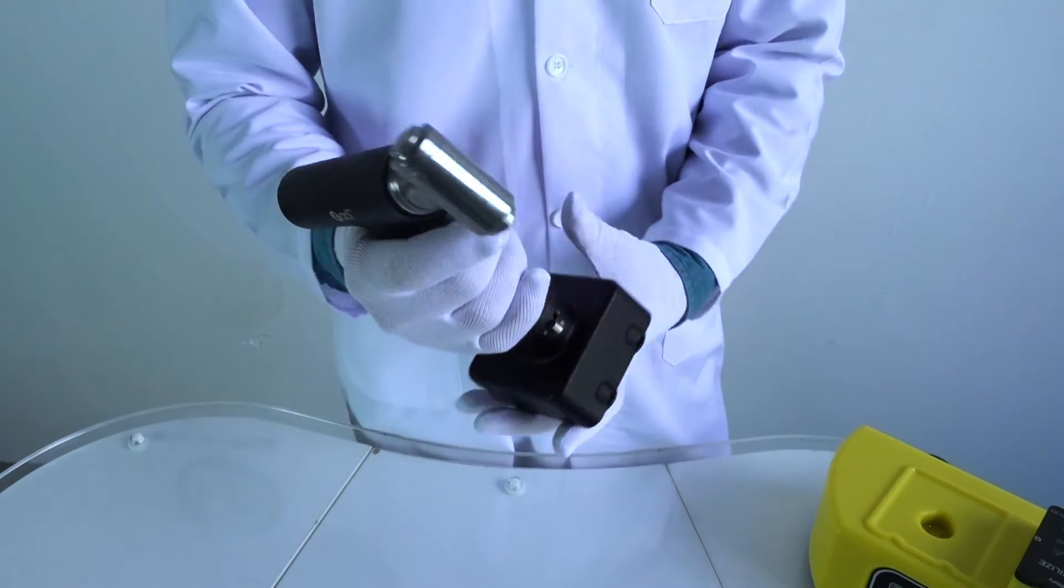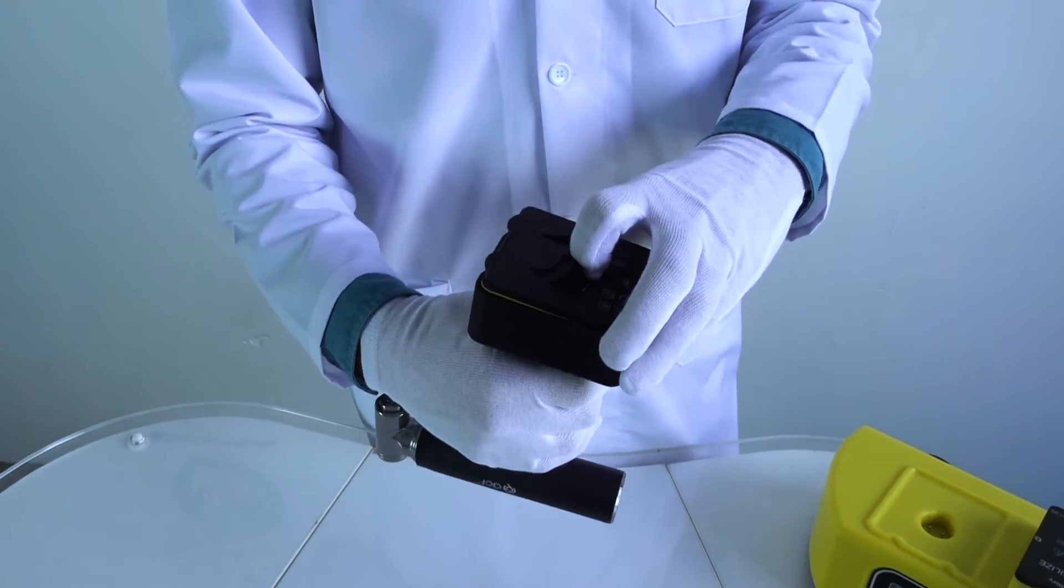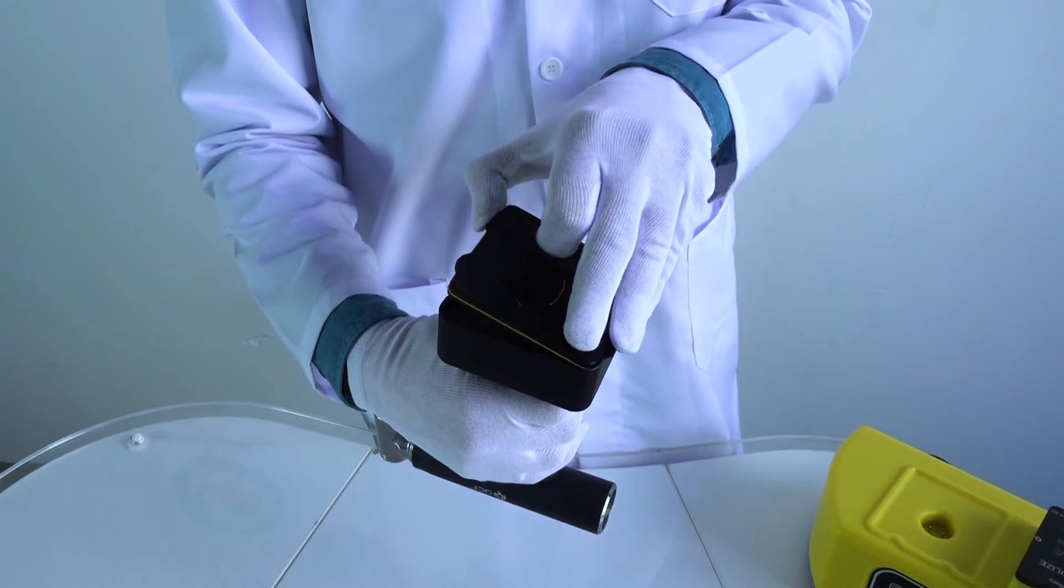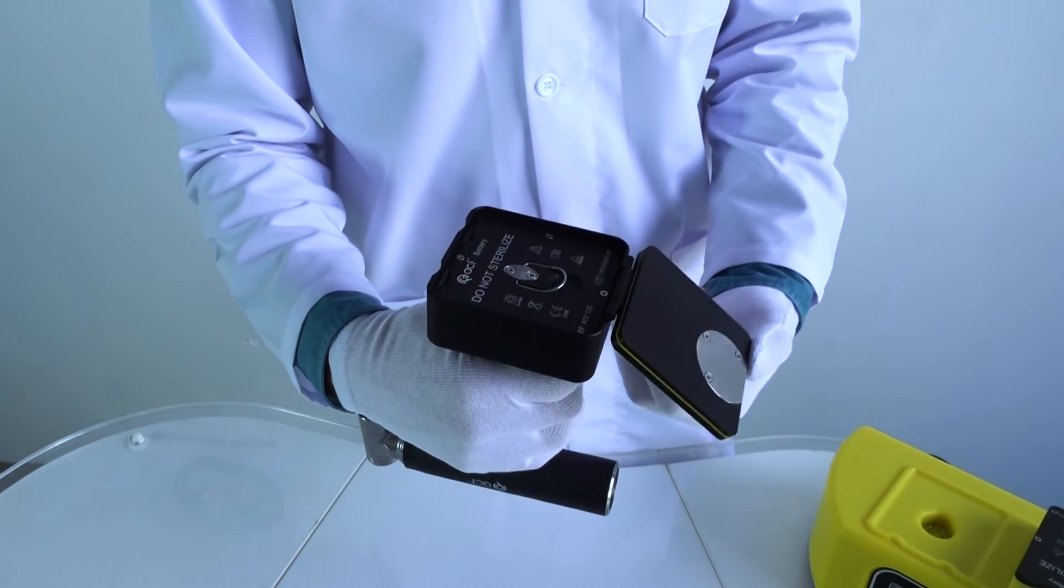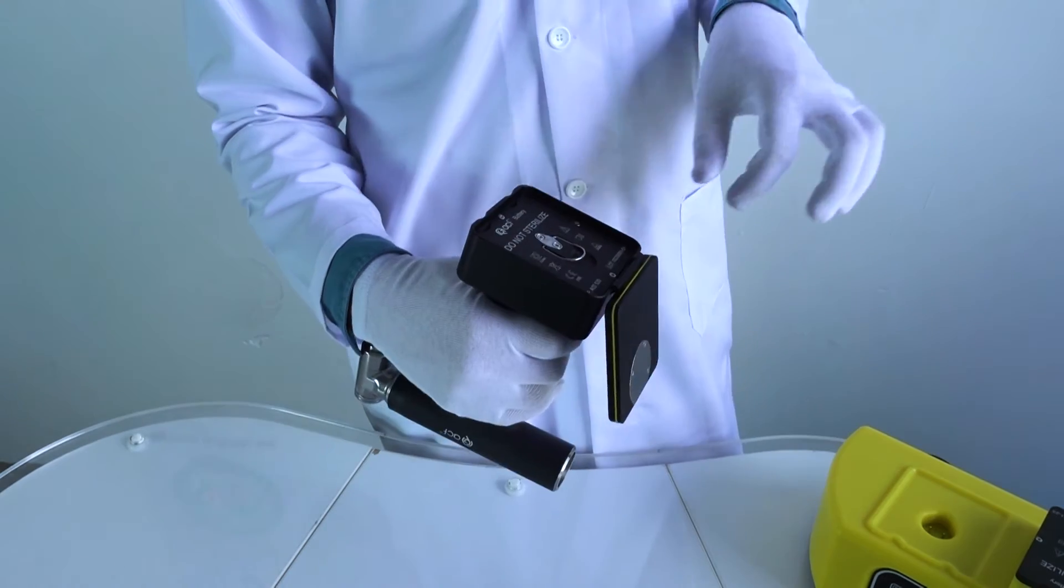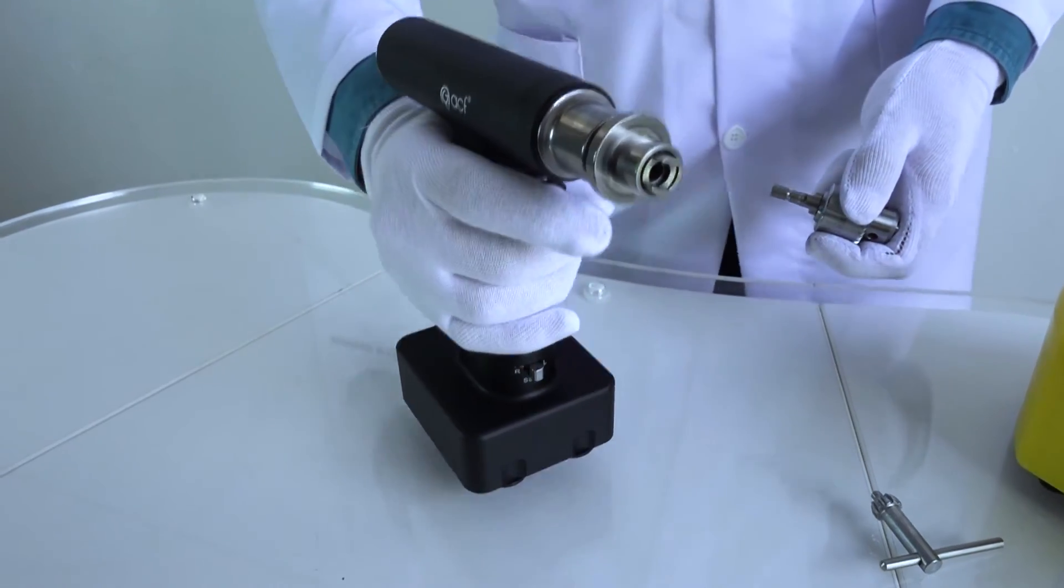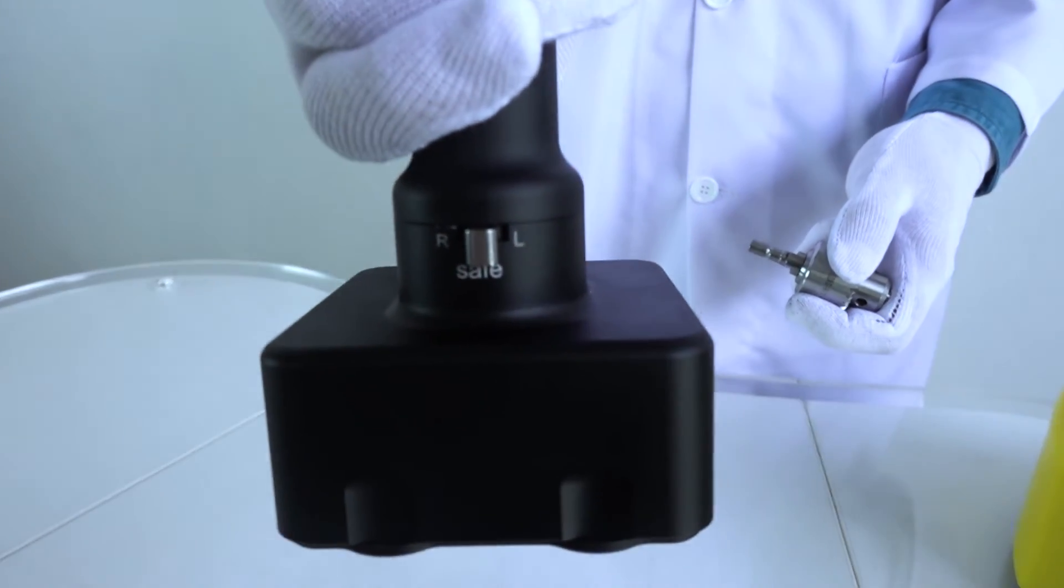The battery will be damaged because the electrical card is constantly active. During storage periods, keep your batteries at 100% charge state. The reamer system can be used for knee operations as a drill.